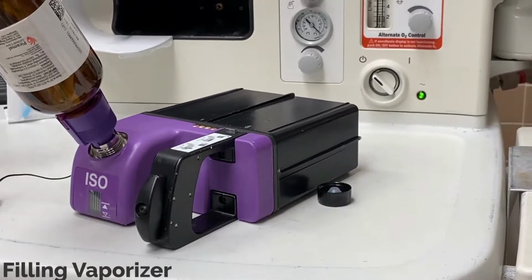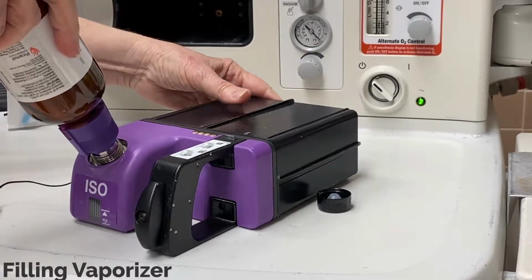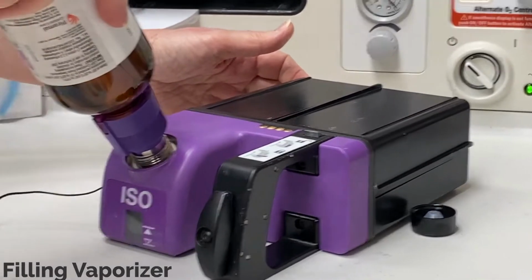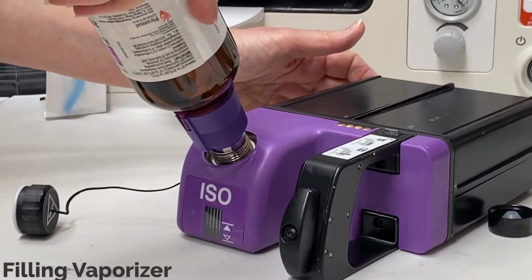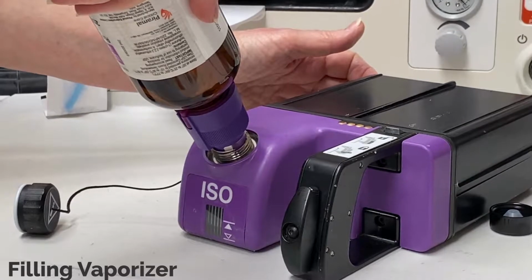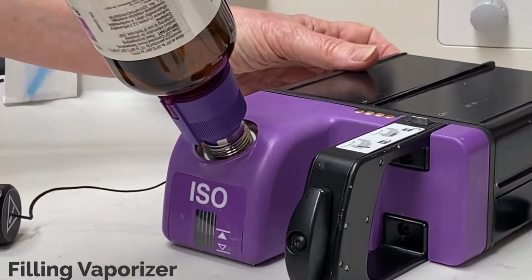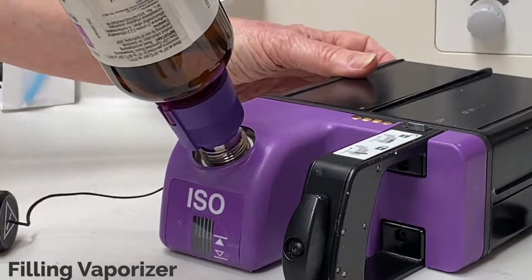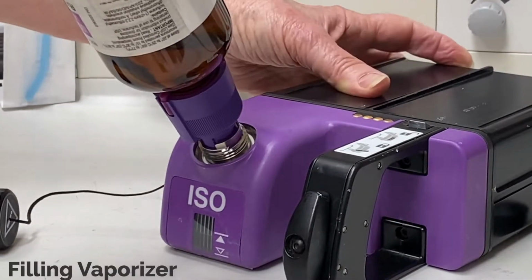You will see bubbles entering the bottle. Watch the liquid level indicator and pull the bottle out of the port once the level has reached the line adjacent to the solid triangle full line. If you are in an active case, remember to turn the agent back on as it is automatically paused when the cassette is removed. Remove the Easy Fill adapter from the bottle and re-secure the cap.